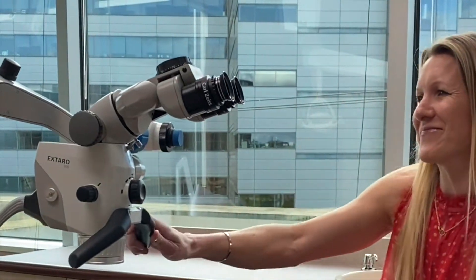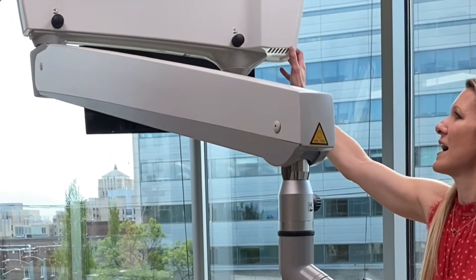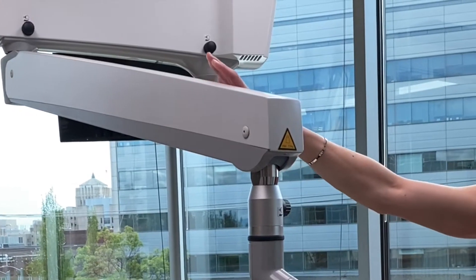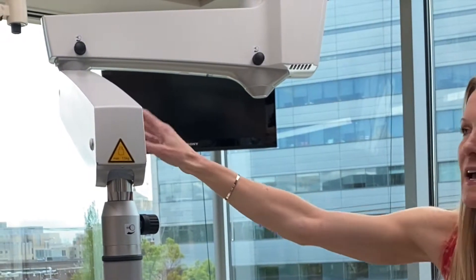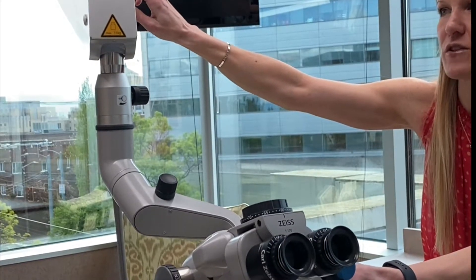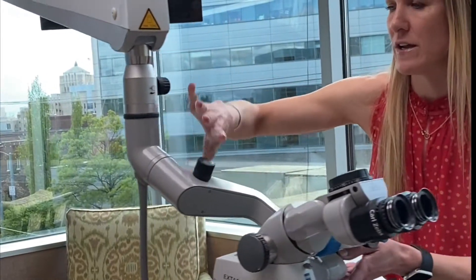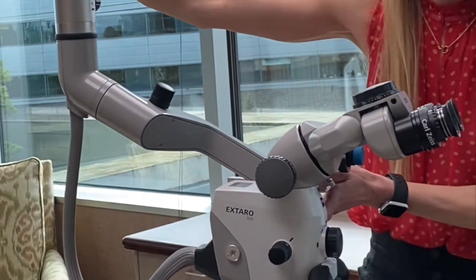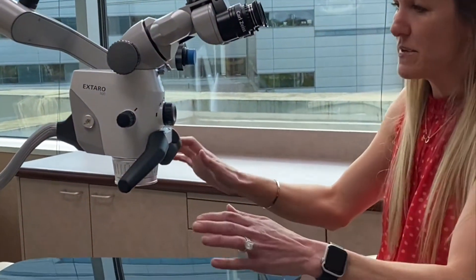We're going to go ahead and get started and I'm going to power up the microscope. My power button is up here — I'm going to turn it on. One thing as you're setting it up is you want to pay attention to these friction knobs on the suspension arms, and you want to tighten them down enough so that this arm and the scope in the yoke is not all moving while you're setting this up. You want it to be pretty still and stable, tightened up enough that there's not going to be any drifting.